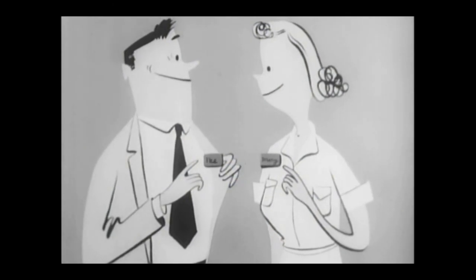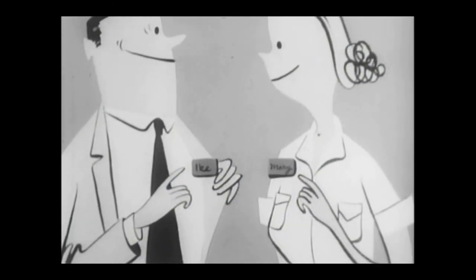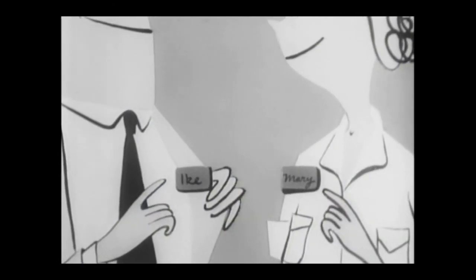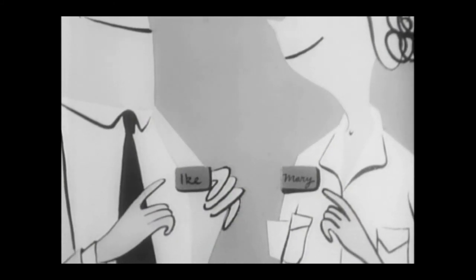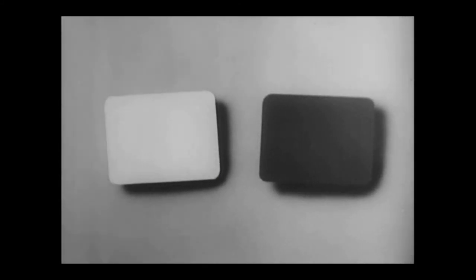Above all, keep tabs on the amount of radiation you're absorbing with a strip of dental film or some other detection device. Wear it. Each week have it processed and read by an expert. The density of the film will show whether the radiation to which you've been exposed is safe or dangerous. If you've had too much exposure, find out why.